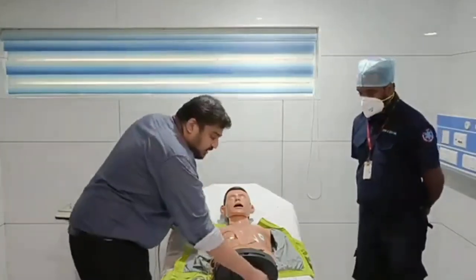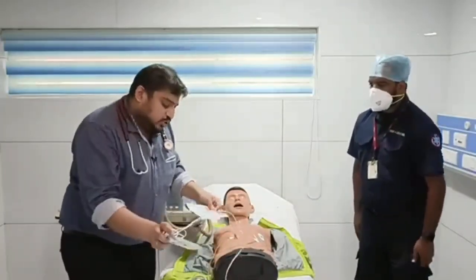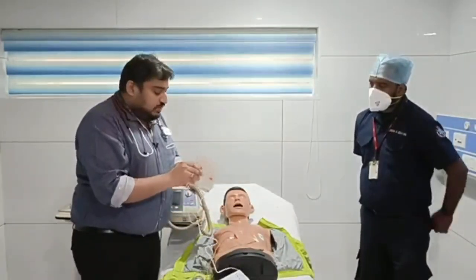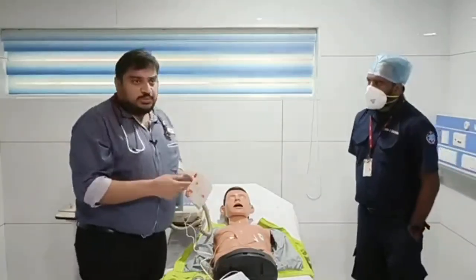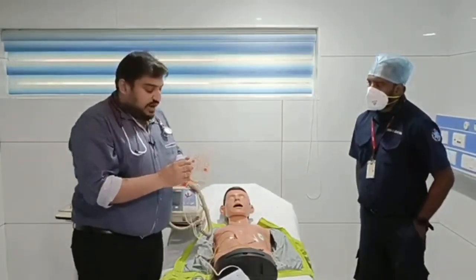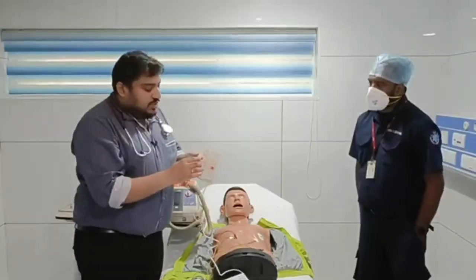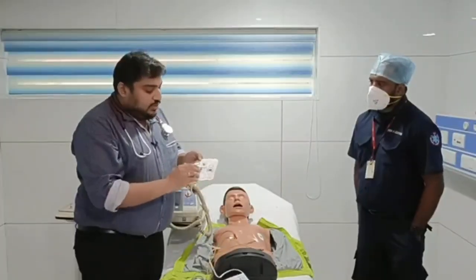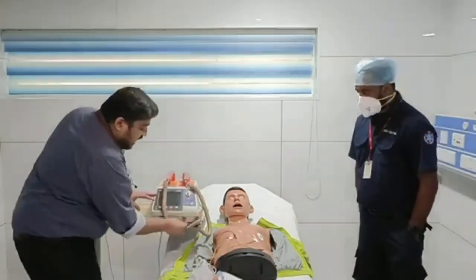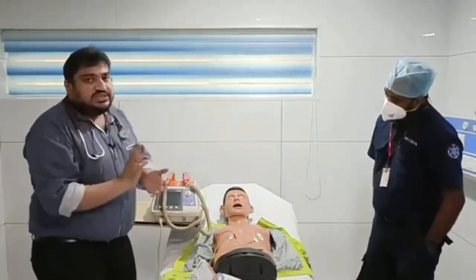And again, there is one more thing that I just need to show you. There is something called disposable paddles, like this. Sometimes the patient is in a prone position, a prone ventilation patient, so you need to show that, and you can use these adhesive paddles. So again, we can apply one over here, one over the right side, and one over the left side. So that is the adhesive paddle. If it is available, you can disconnect and connect to this area, and it will work as an adhesive paddle.